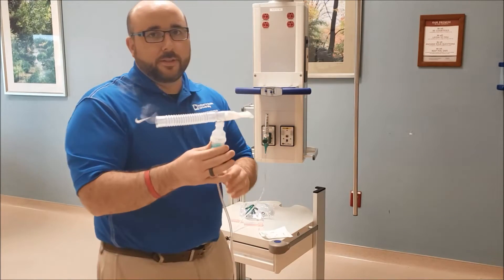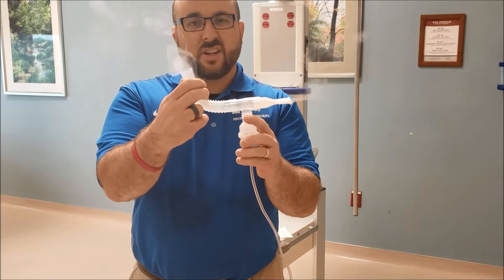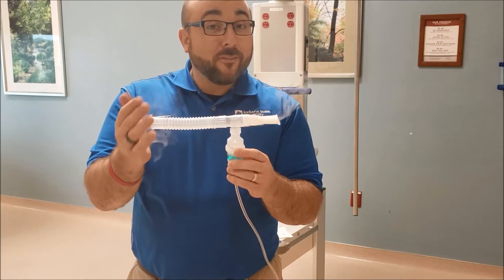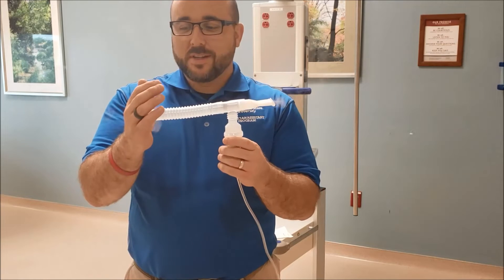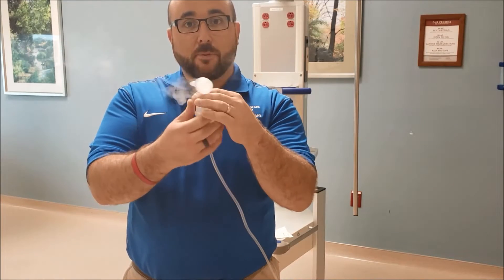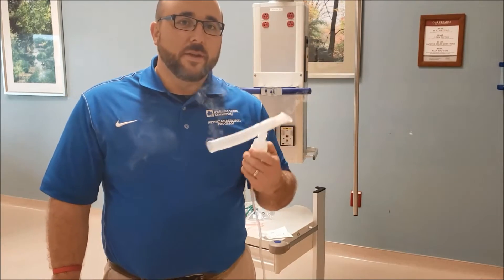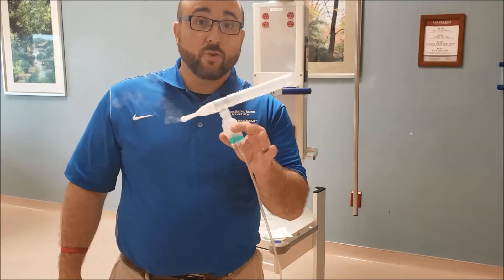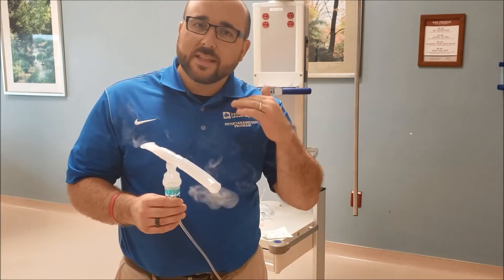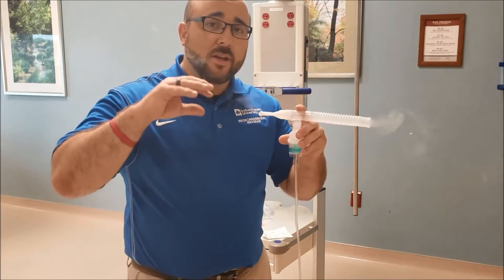Eight liters per minute. Now you can hear it nebulizing. You can see the nebulized medication — saline in this case — coming out both sides. This is room temperature; it doesn't really have much of a temperature to it. Now the key is they're going to put this in their mouth and breathe it in. When I hand this to a patient, I ask them to bite down on the mouthpiece and breathe normally — and then every four to five breaths, take a breath in and hold it, then let it out. The real key is that they have a smooth laminar flow when they're taking their treatment, because we want to get it down to the lower parts of the airways.